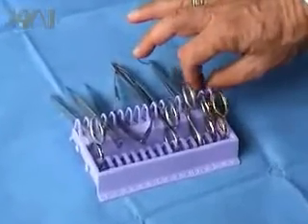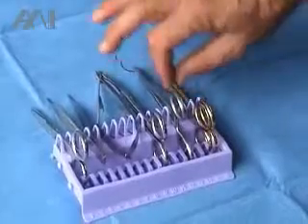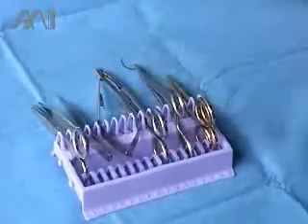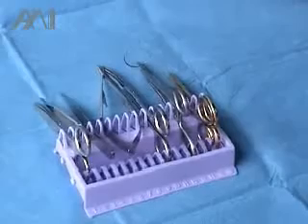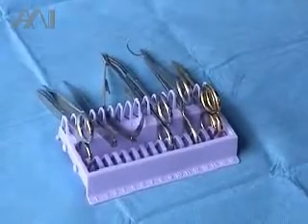On the handling of the instrument, it is very safe to pick it up, put it back into position, as well as the forceps, and it's always organized. This is considered a purple parking place for all sharps in surgery to avoid accidental sharps injuries.